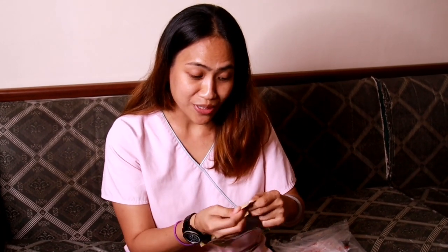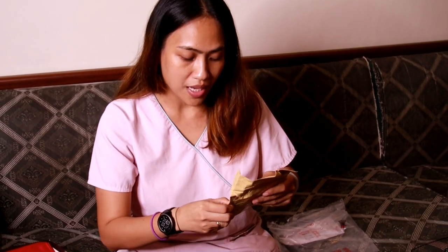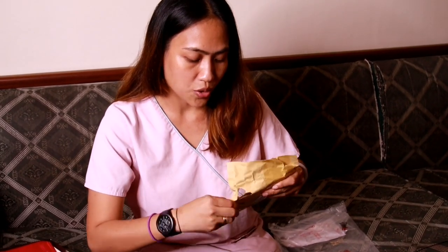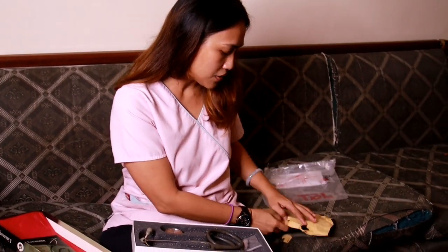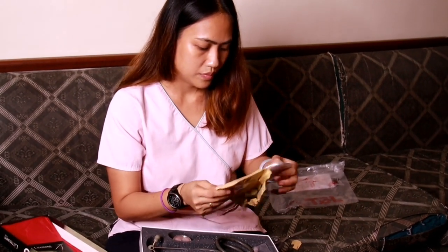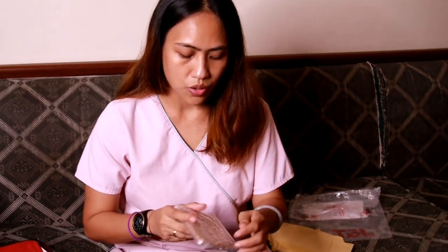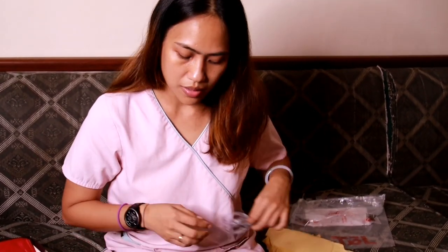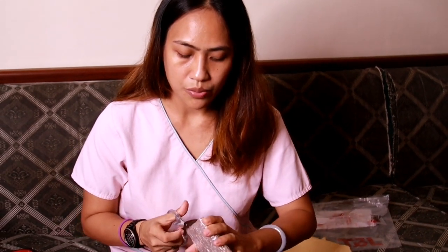So we will see if it really fits. I hope it does, so I can use my damaged stethoscope when I go and check my patients for work. Since the product is small, the box is small too, but at least it came with bubble wrap.